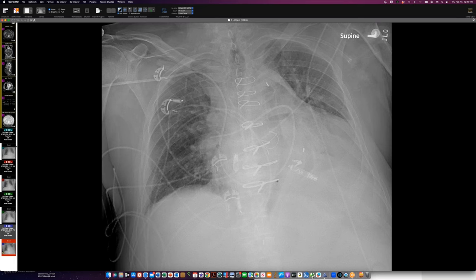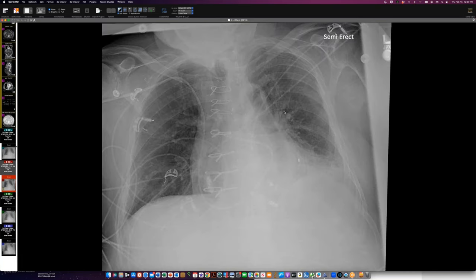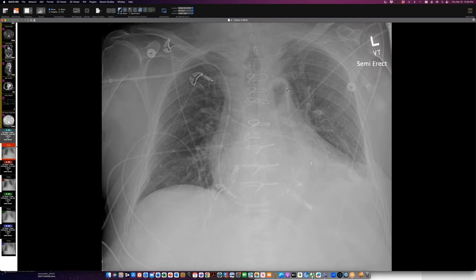There's about 25 centimeters between the proximal marker and the marker at the tip of the intra-aortic balloon. You'd like to position this at the lower aspect of the arch — maybe a couple centimeters lower would be great. Then things deteriorated — notice the marker is moving up. At a later point, you don't really see the marker anymore, you see the balloon inflated into the arch. Looking carefully, the marker is over here — this thing is over the arch, probably folded back, with the inflated part actually in the ascending aorta. I'm embarrassed to admit I did not pick this up on this radiograph, but I did the next day.